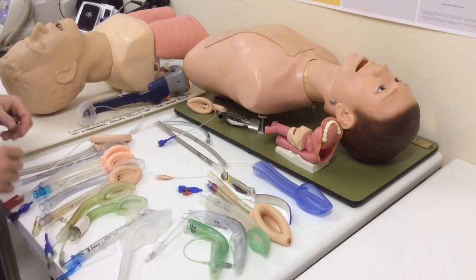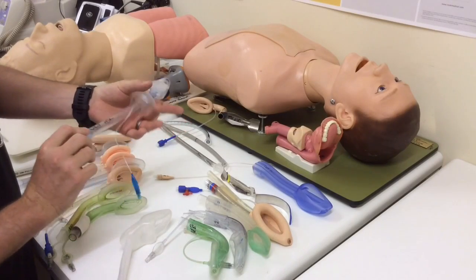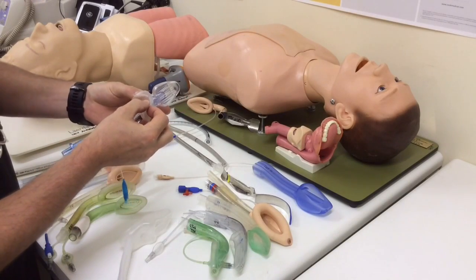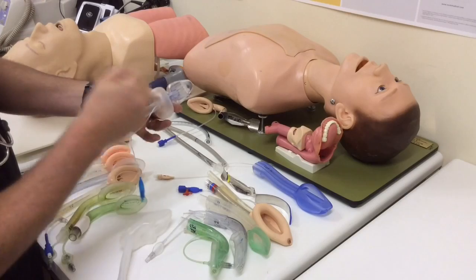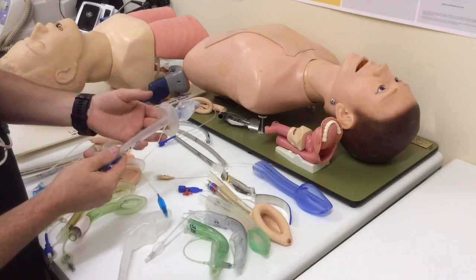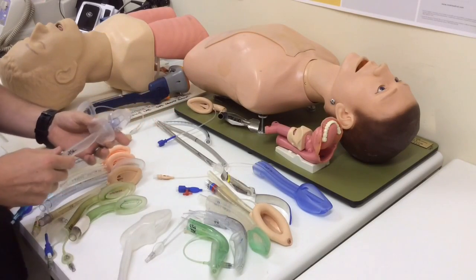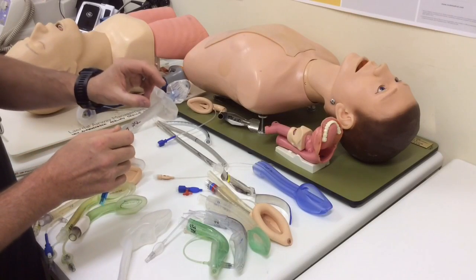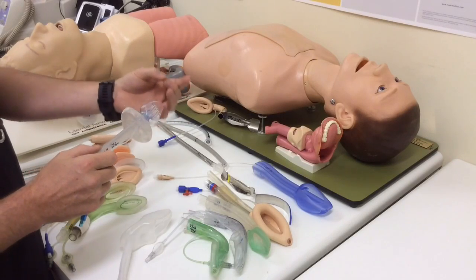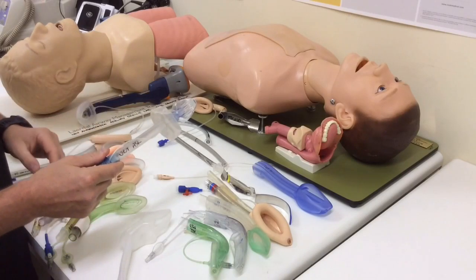Another option is that you can have a cuff that seals right around the pharynx. So here's a Cobra PLA, and you can see it's got an inflatable cuff that sits in the pharynx and it seals right around the pharynx. So this is a cuffed peripharyngeal sealer. Another example of this would be something like a King laryngeal tube airway or a Combitube. And some of the peripharyngeal sealers have also got a cuff which inflates and helps to seal off the most cranial end of the esophagus, and so they've got a second cuff and function much in the same way.